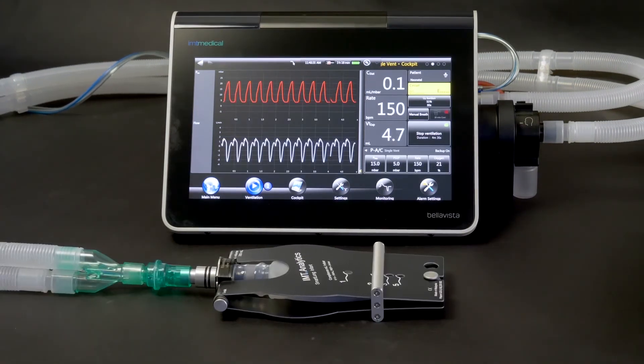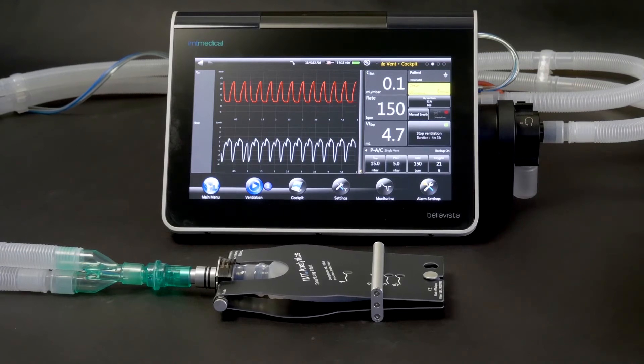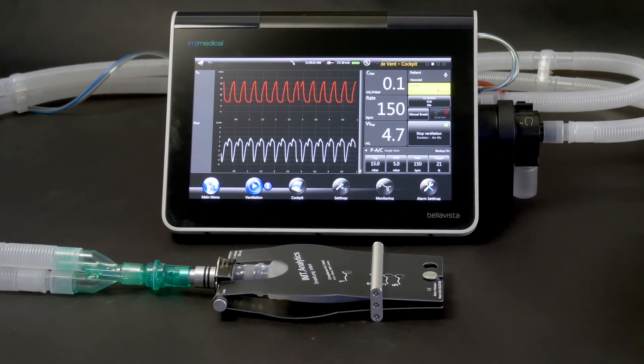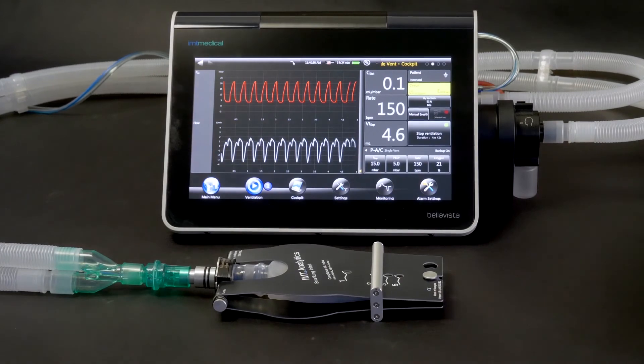IMT Analytics Test Lungs allow the user to simulate different patient conditions from infant through adult. Test Lungs: versatile and precise patient condition simulation.